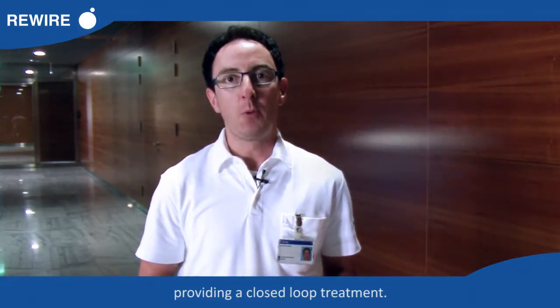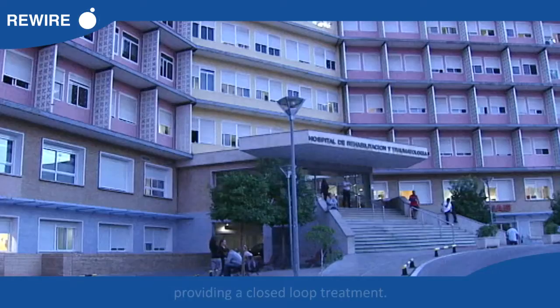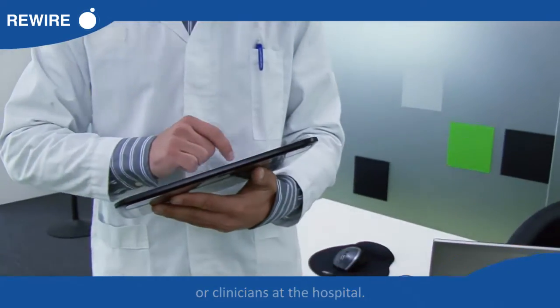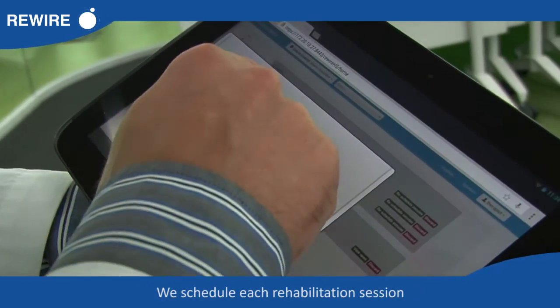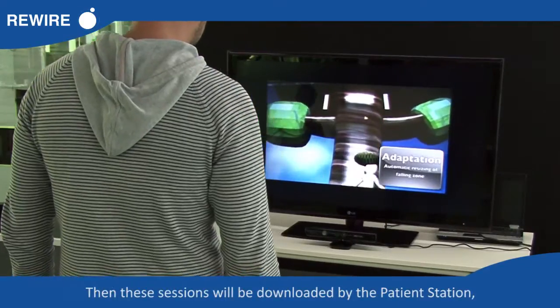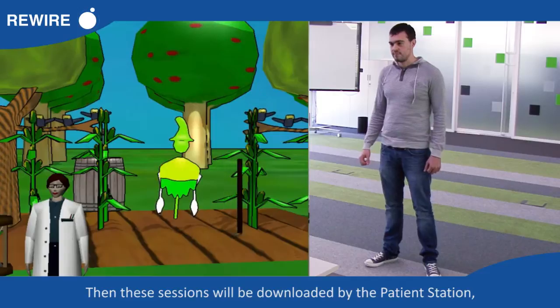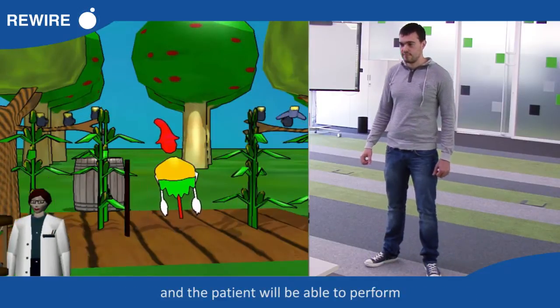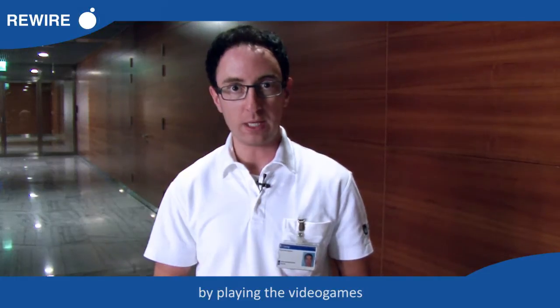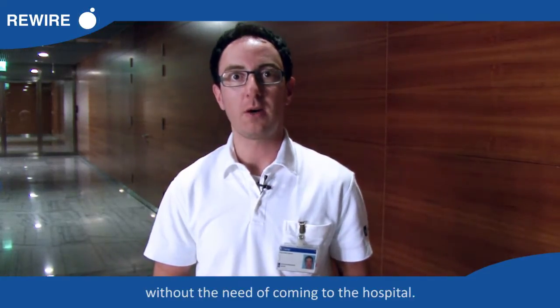The patient is the main player in Rewire. For this reason, the entire process occurs around the patient station, providing a closed-loop treatment. The process starts with therapists or clinicians at the hospital, who schedule each rehabilitation session through the hospital station. These sessions are then downloaded by the patient station, and the patient is able to perform the therapeutic exercises at home by playing video games without the need to come to the hospital.